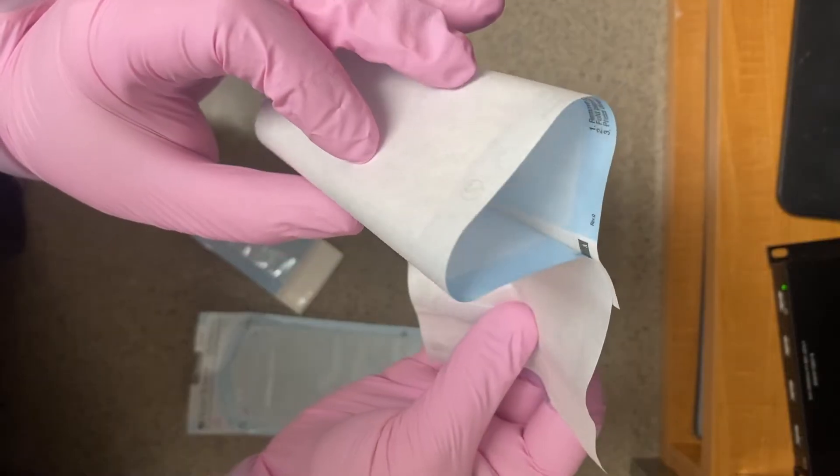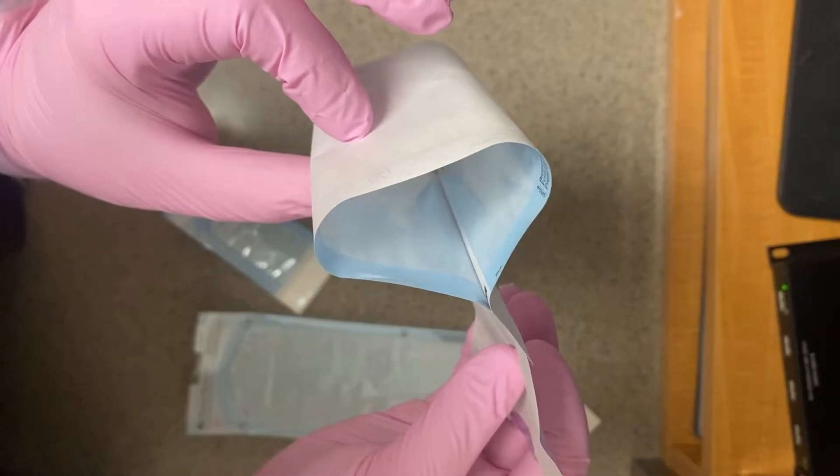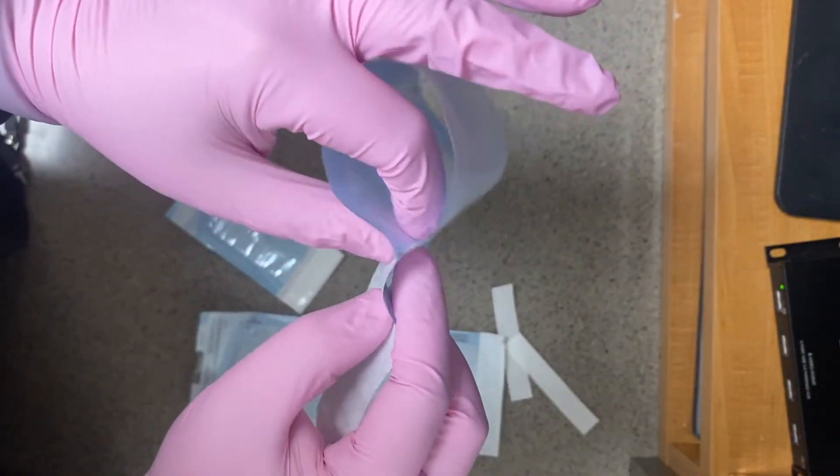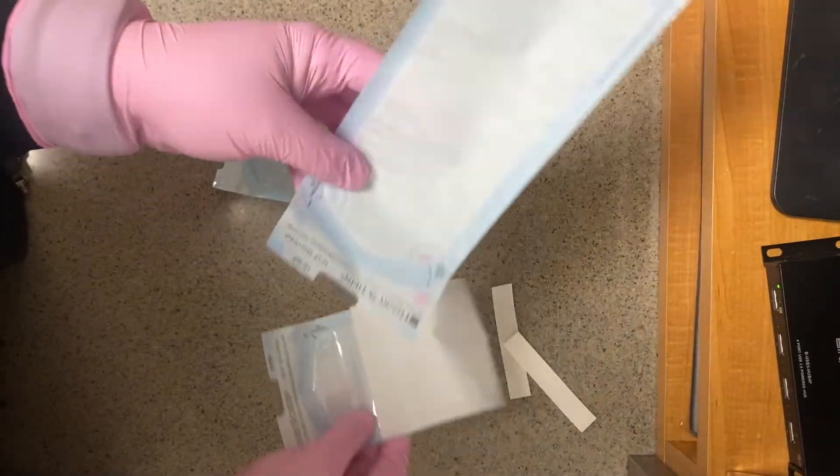If you look inside, it doesn't close or seal the bag. So technically, when it comes out of the autoclave, it's not fully sealed, so it's not sterile anymore. Even if you have a tiny little bur, you still want to fold it on the perforated line.